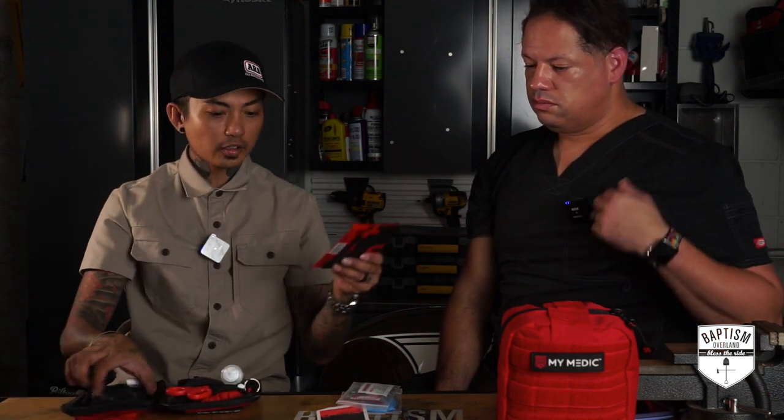So that's it for the Solo kit. It's a cool thing to have for hiking. It's pretty well organized, kind of in two halves: life-saving medications and some minor wound care and management. It's perfect for what you need in a singular travel pack — it's not going to have everything, but it has the basics.